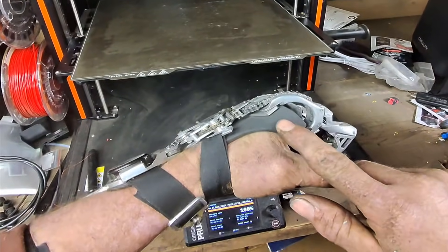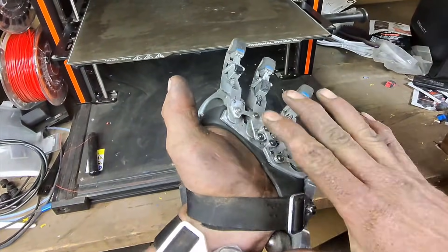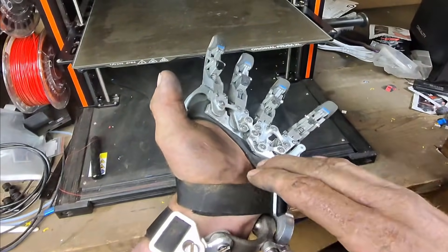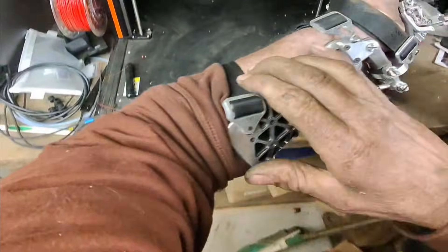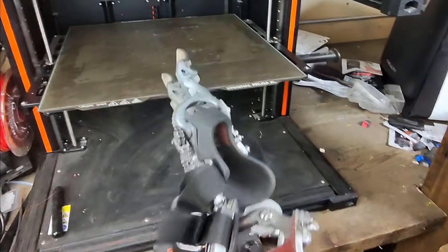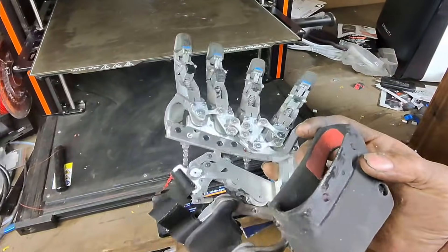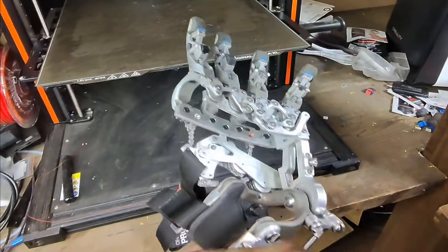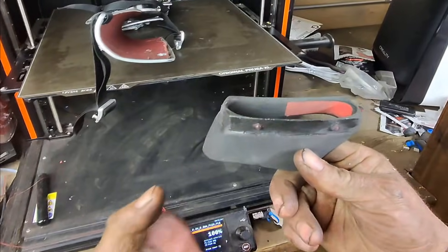One of the big things I've been emphasizing on the prosthetic is that the socket just takes up the void space that is not the mechanics. The socket just pops out, and I have these four points — machined in with a quarter inch ball mill — that lock into four corresponding points on the socket.